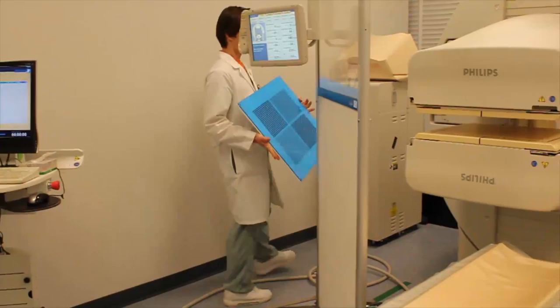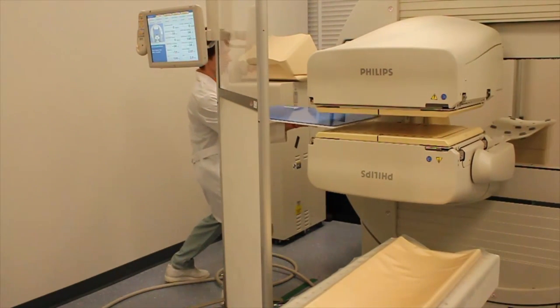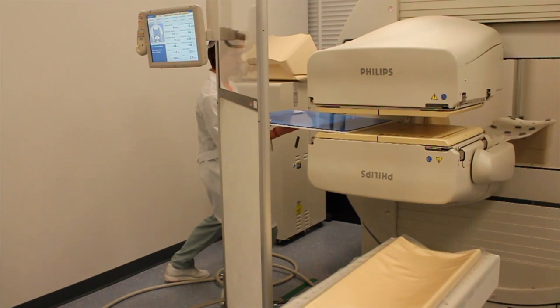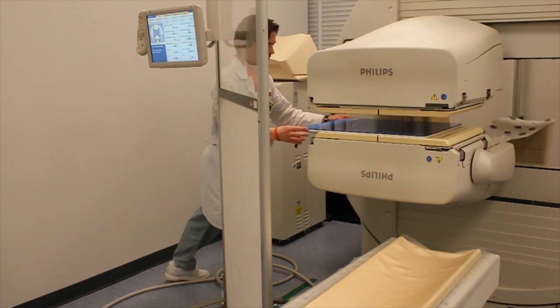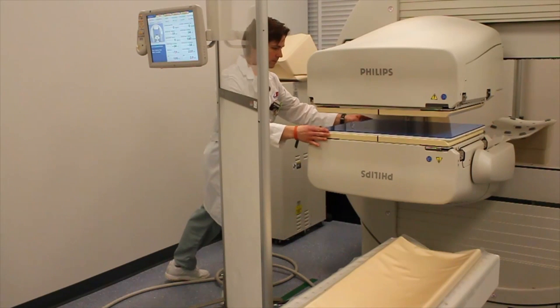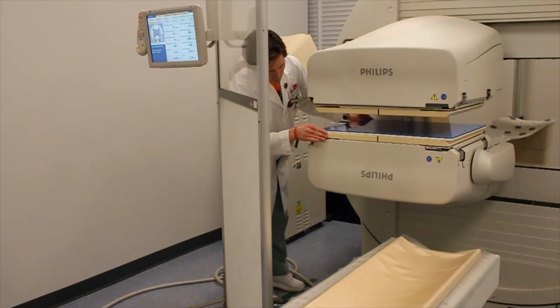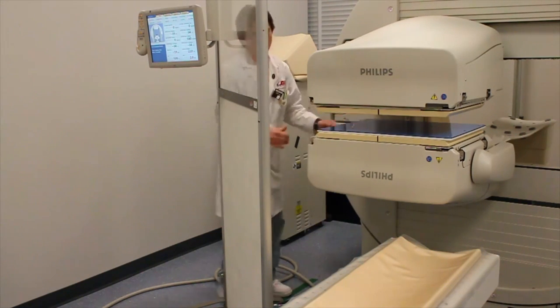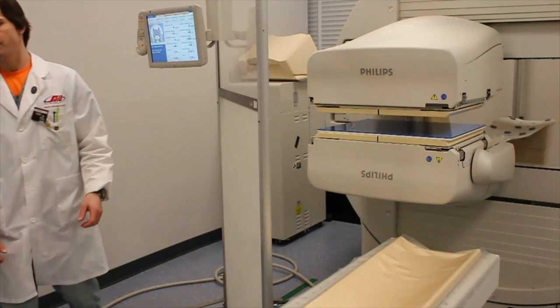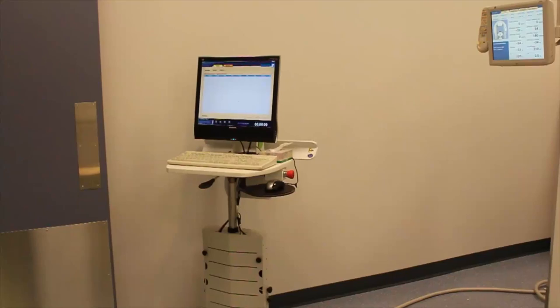Bring the four-quadrant bar phantom. This phantom is relatively heavy. Be very careful not to insert it edge first and damage any collimator surfaces. Center the four-quadrant bar phantom in the middle of the field of view.